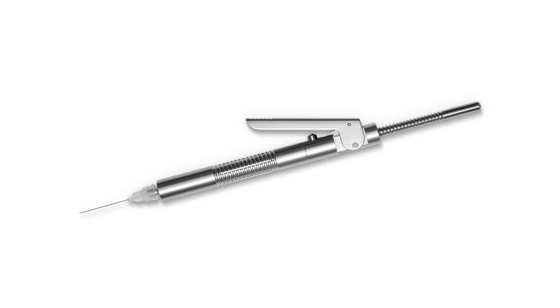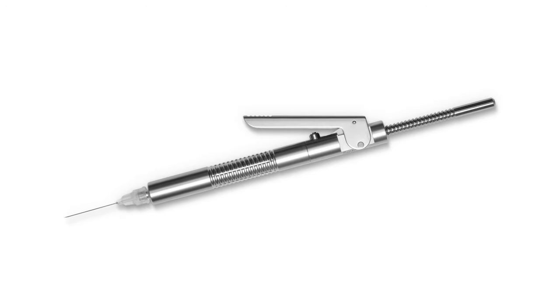It's all about patient safety with this syringe. It helps protect them by keeping the cartridge in the stainless steel syringe, prevents it from breaking the cartridge, and also gives a metered dose of anesthetic when you're administering the injections.